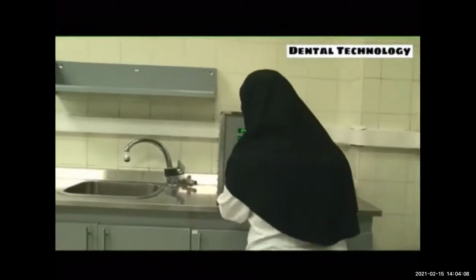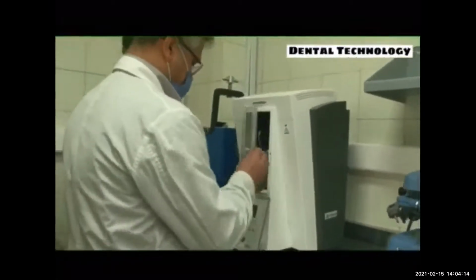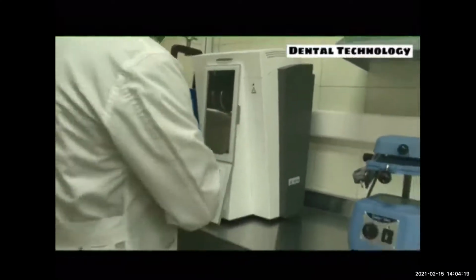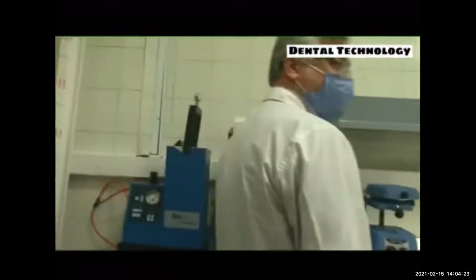This room is intended for acrylic injections and polymerization steps. There are different methods of acrylic processing like injection molding, and we have a device here designed for this method. We can see traditional devices for polymerization at a specific degree.